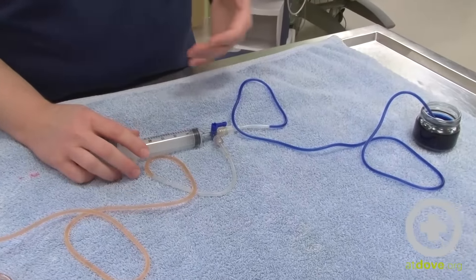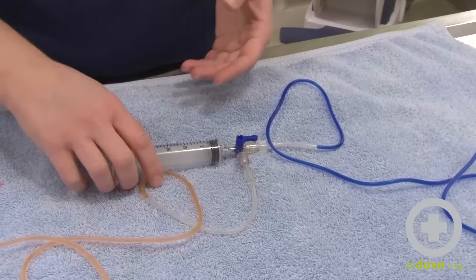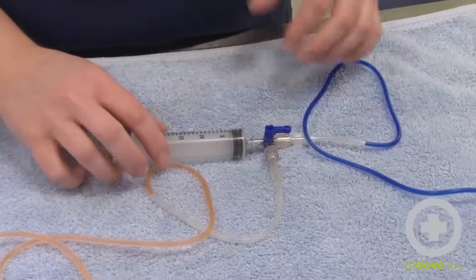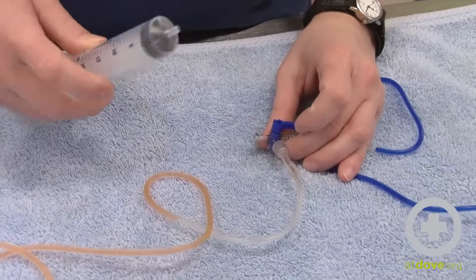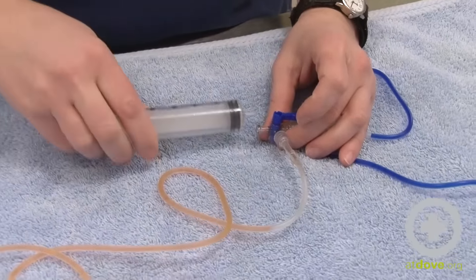So this is important especially if you are in the chest cavity and you want to draw back your fluid or air and you don't want to have to disconnect your syringe from the needle every time you need to empty it.